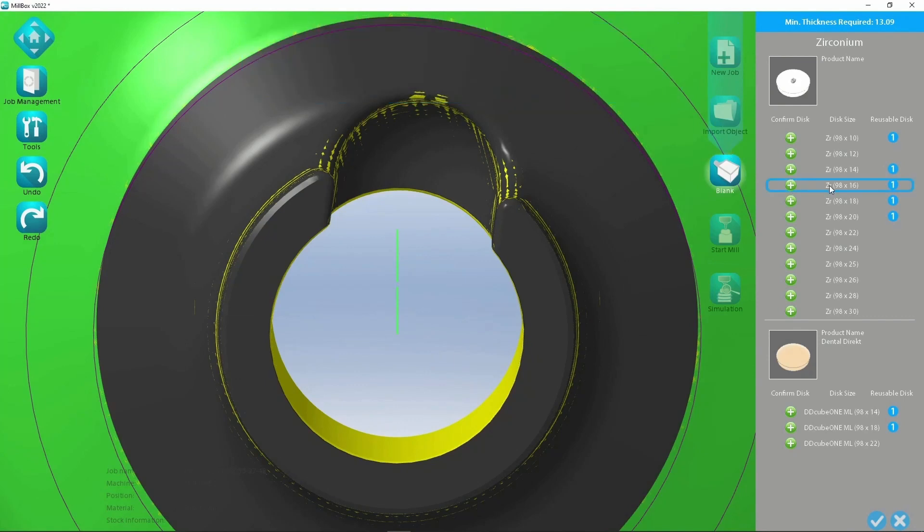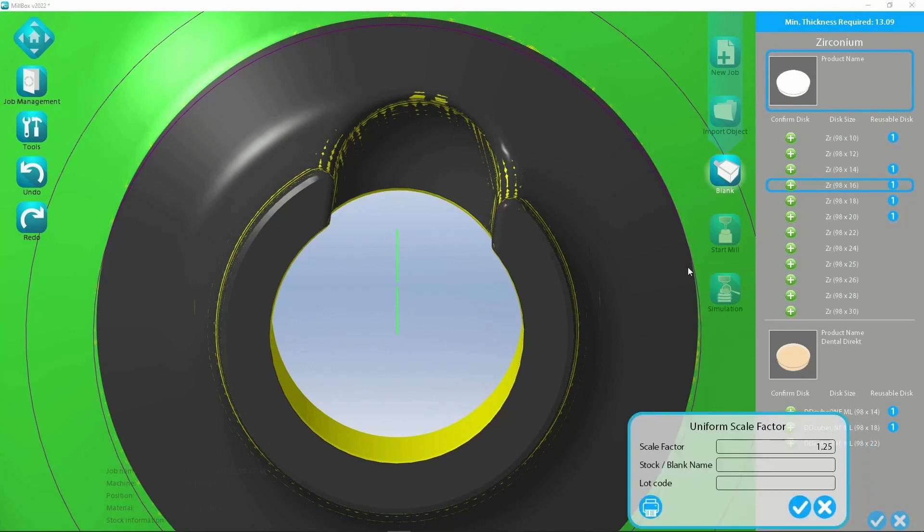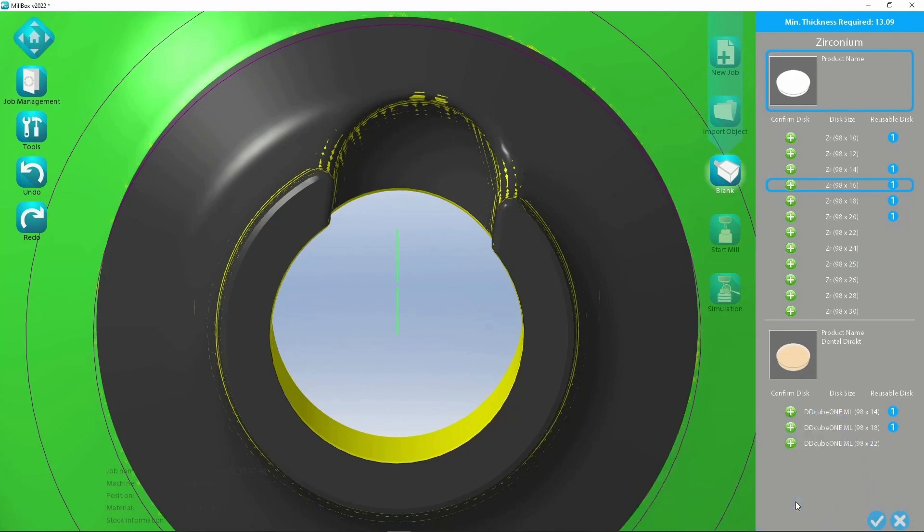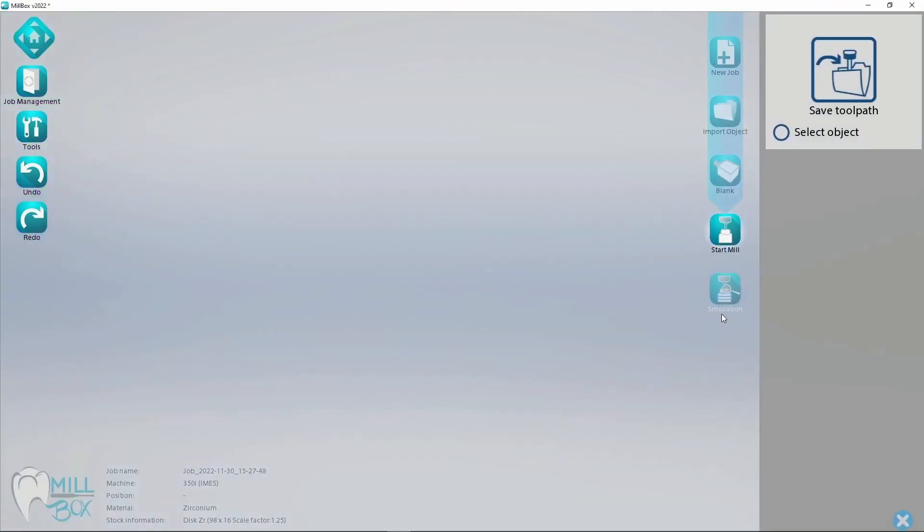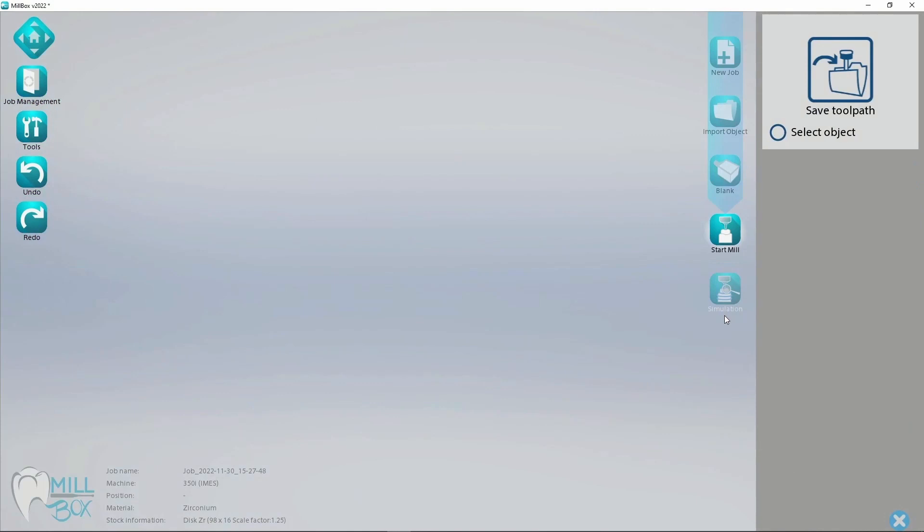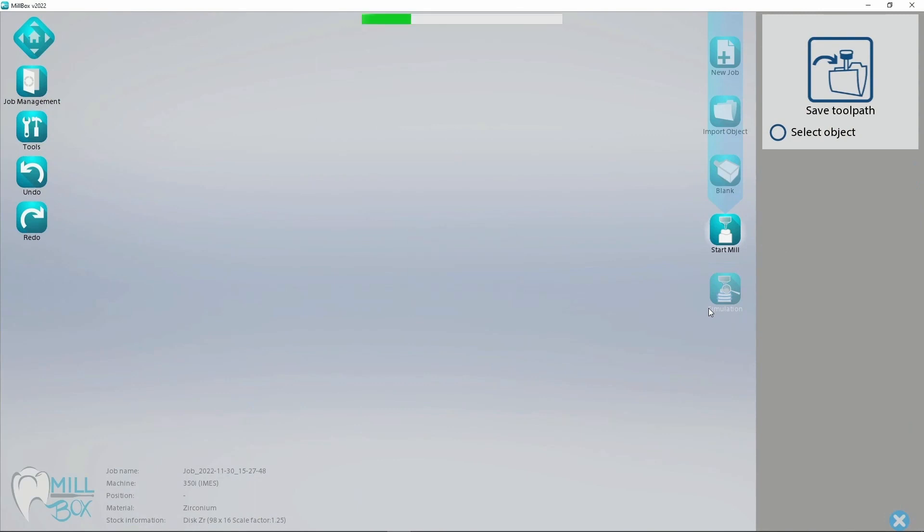Next step: select relevant thickness of the blank. Next step: press Alt Enter and calculate the strategy.